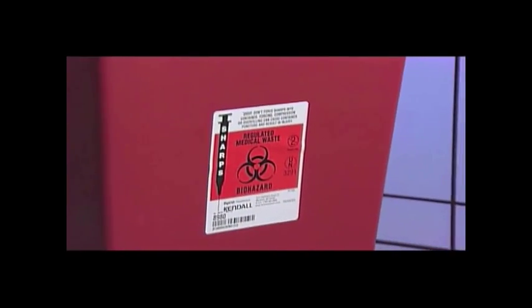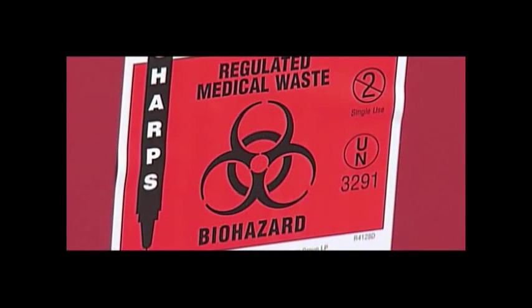Appropriately dispose of all used ATEC product such as handpiece, marker deployment device, and canister.